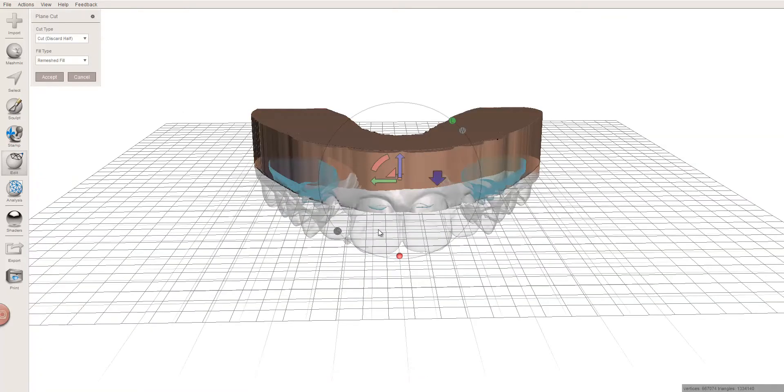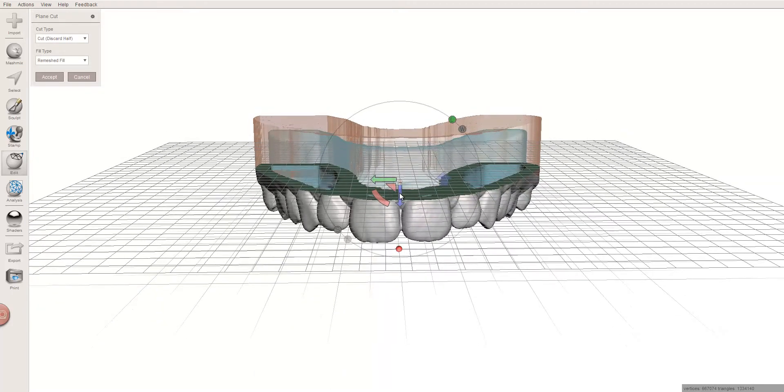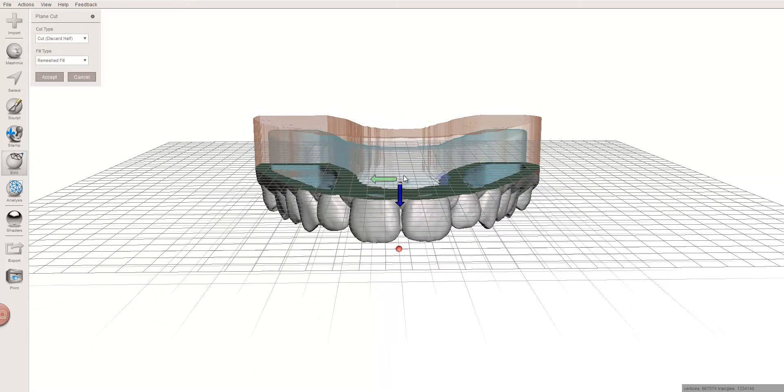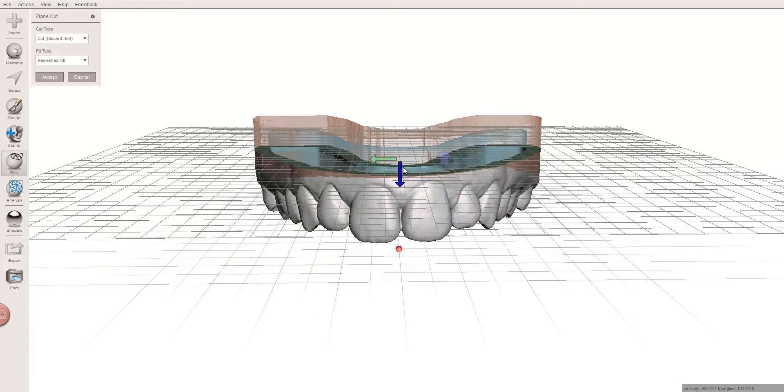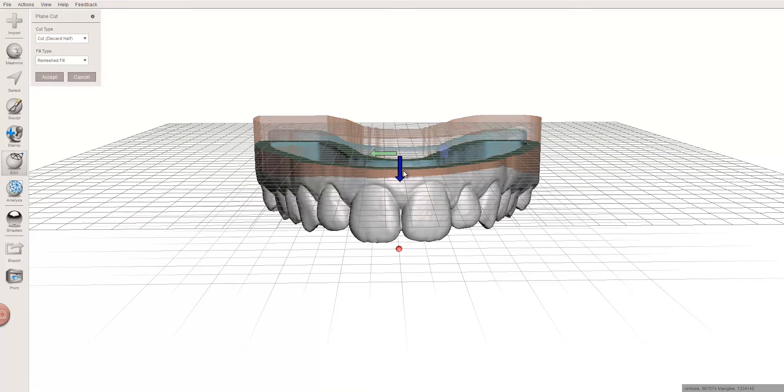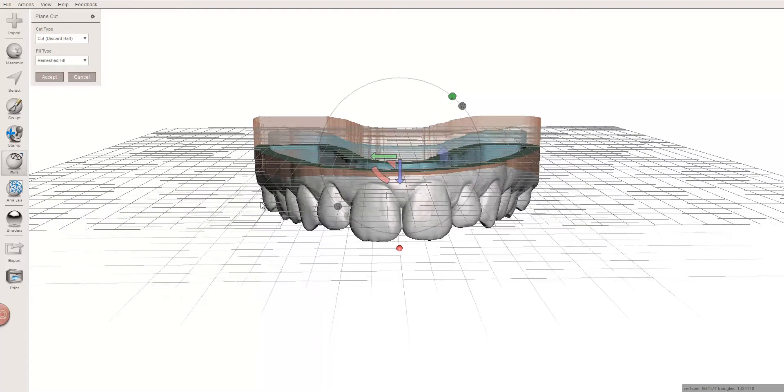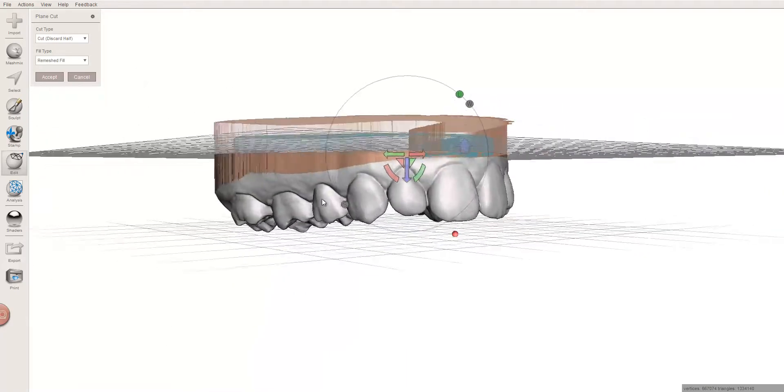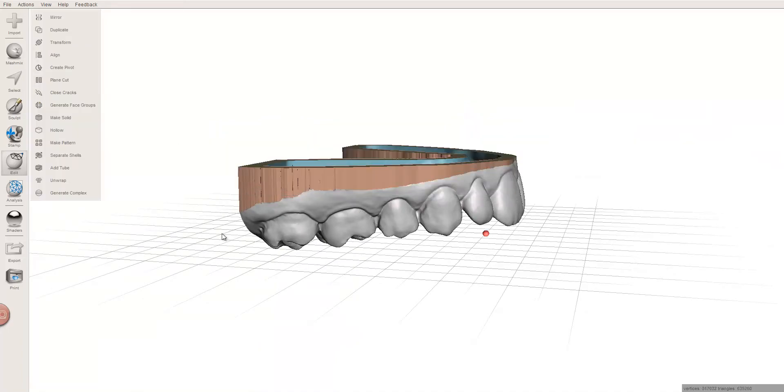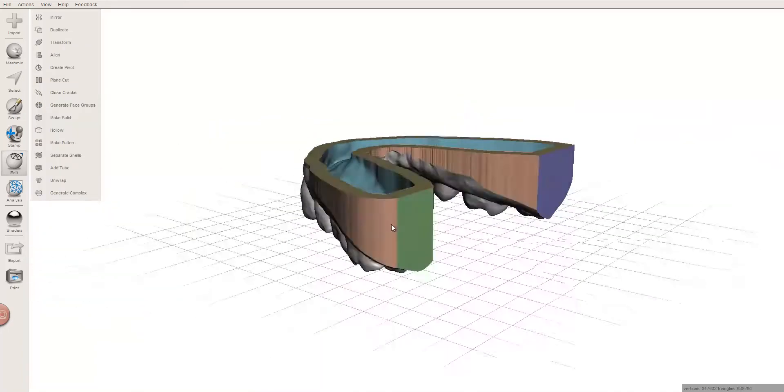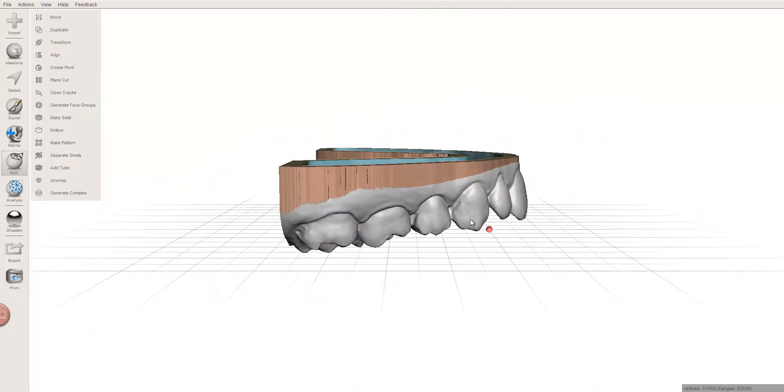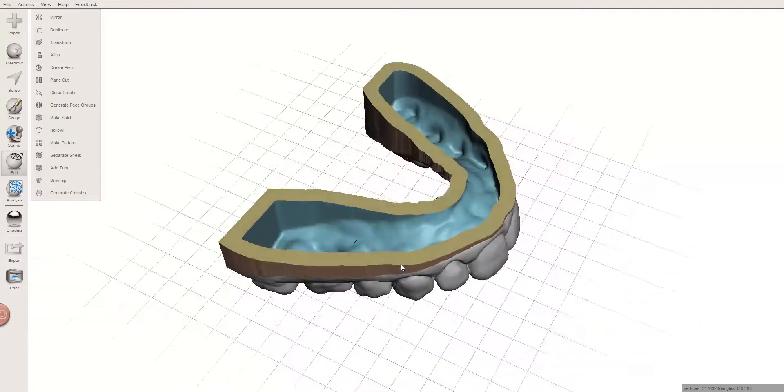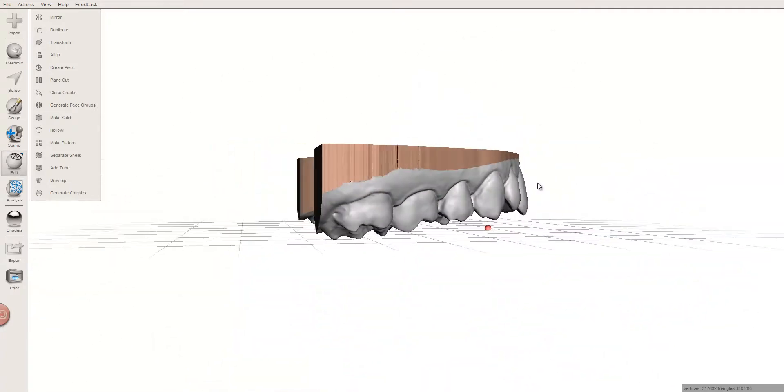And now I'm going to do my plane cut so that I've got a model that is the size I'm really going to want to print. I don't want to have all that excess - just a waste of material and waste of build platform size. So this is a reasonably sized model. There's a bit of an occlusal cant to that, not a big deal, I'm not really worried about it for this video. So right now we're ready to print this.